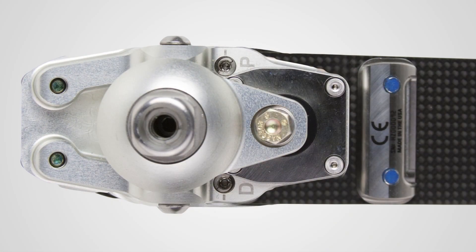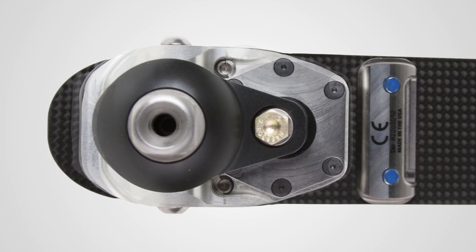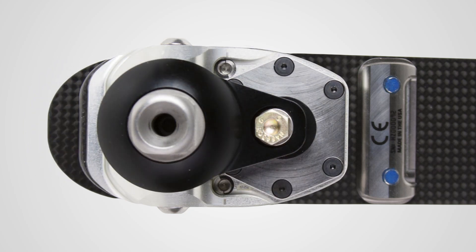The Odyssey K3's ankle housing was strengthened to withstand the impact of moderate activities. The hexagonal shape of the piston cap and additional fasteners provide a stronger seal.